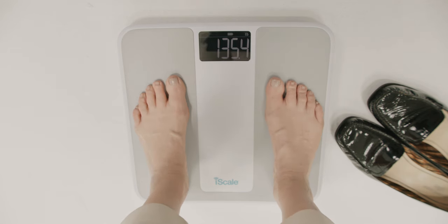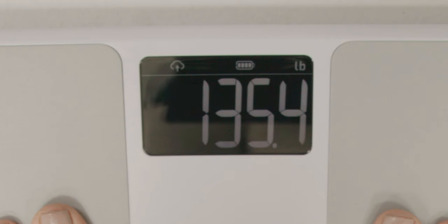Your measurement will appear shortly, blink twice, then automatically transmit your measurement to your doctor. The scale will display OK upon successful transmission of your measurement.